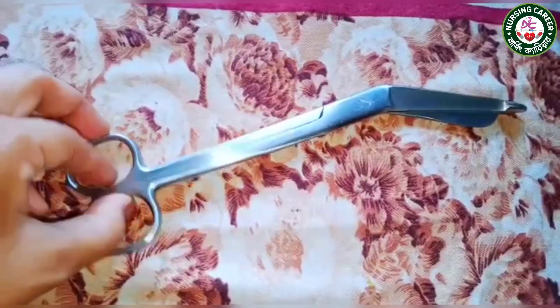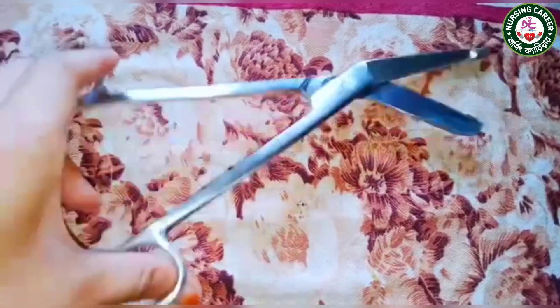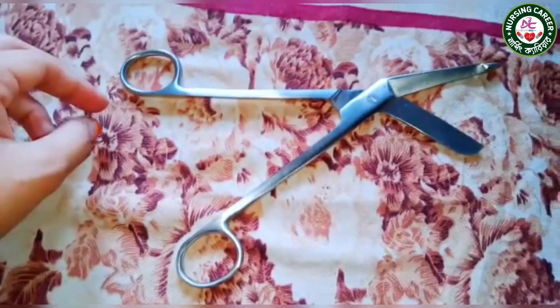This is a bandage cutting scissor. It is used for bandage cutting.